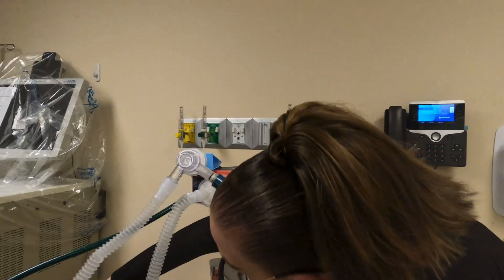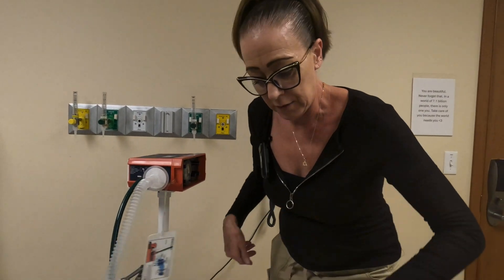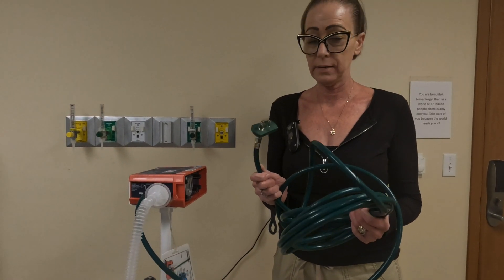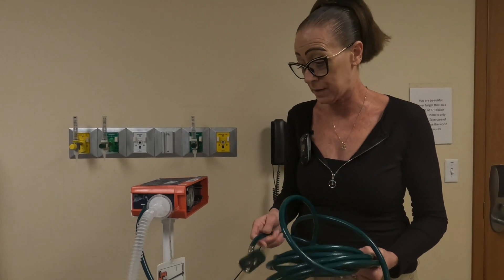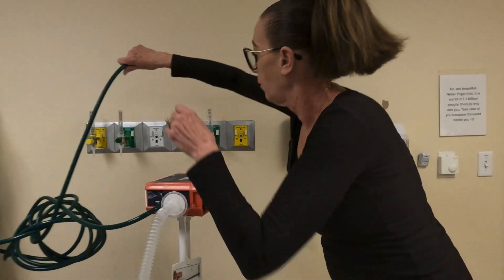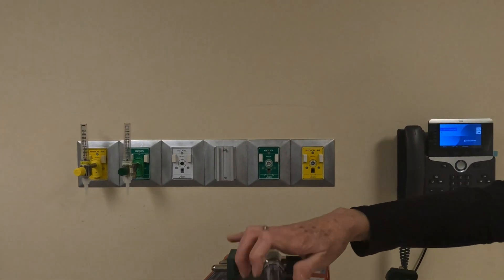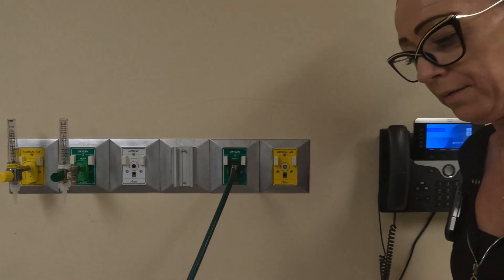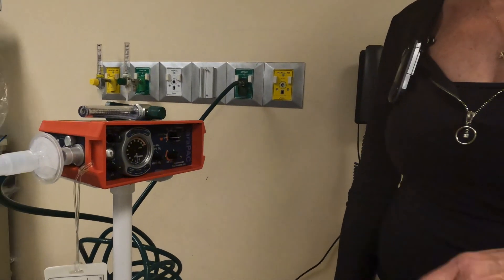As a helpful hint, check your gas first. Ideally you're going to be hooking up to a quick connect at whatever destination you're going to — I strongly suggest using their O2, as that's always going to be the best bet. However, it isn't always the way that it happens, so that's just another thing to keep in mind. We are now going to hook up to our oxygen source quick connect.